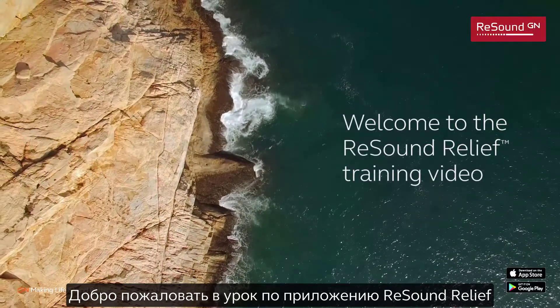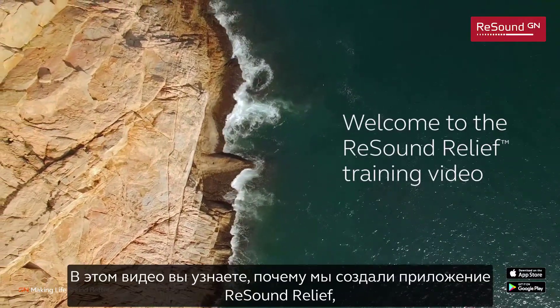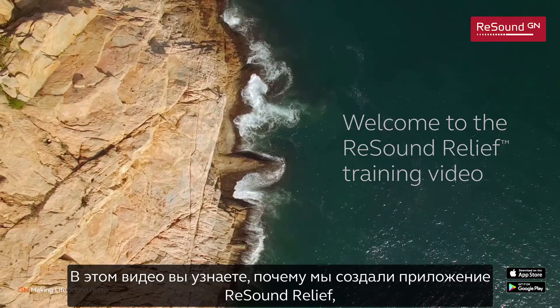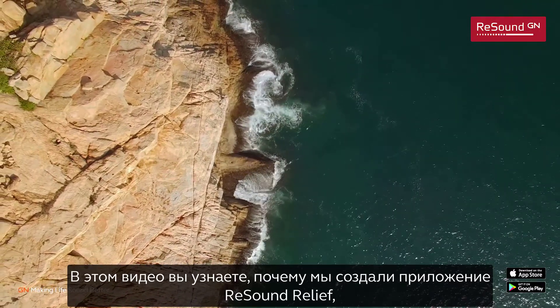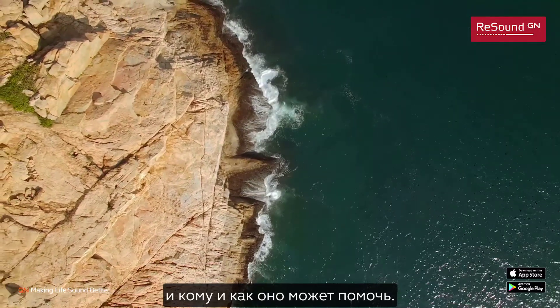Welcome to the ReSound Relief training video. This video will tell you why ReSound Relief exists, who it helps, and how.